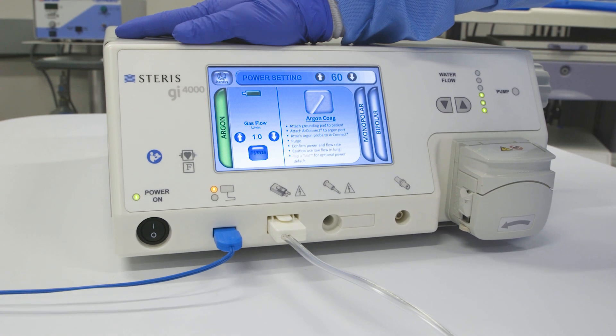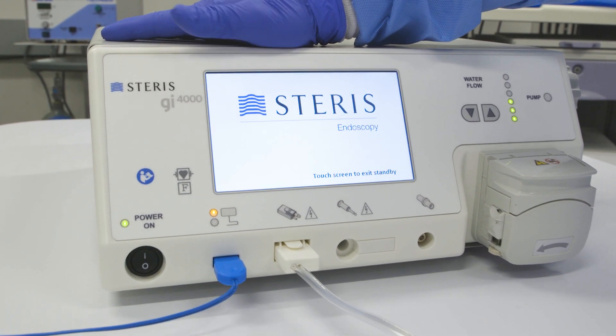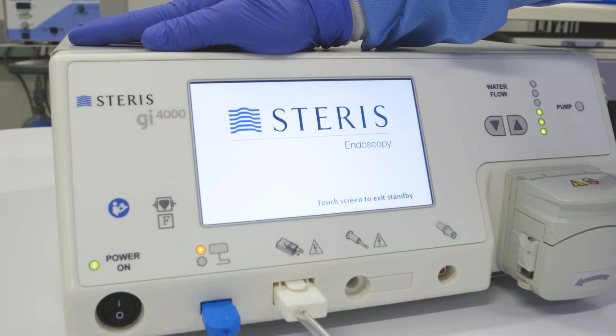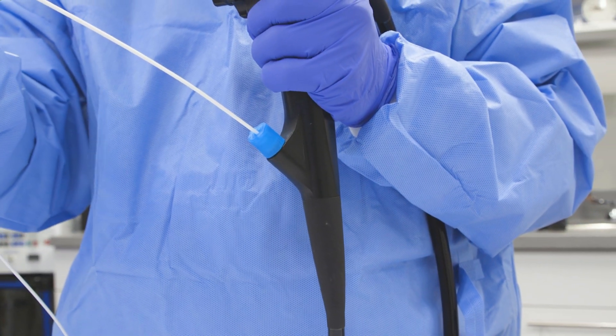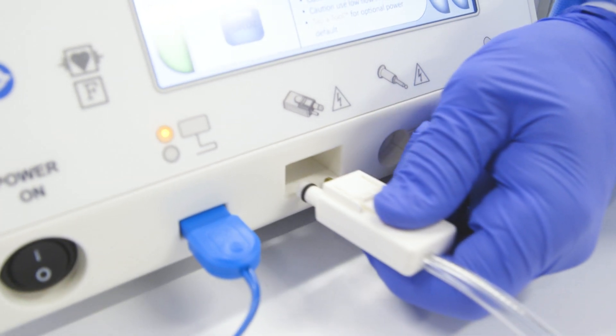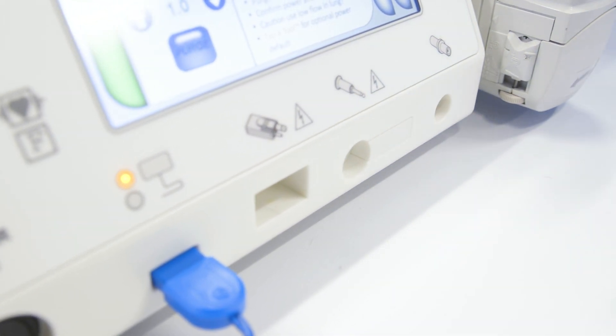To prevent this from occurring, place the GI-4000 in standby mode and remove the argon probe from the patient. Next, disconnect the ArcConnect argon probe connector from the ArcConnect receptacle.